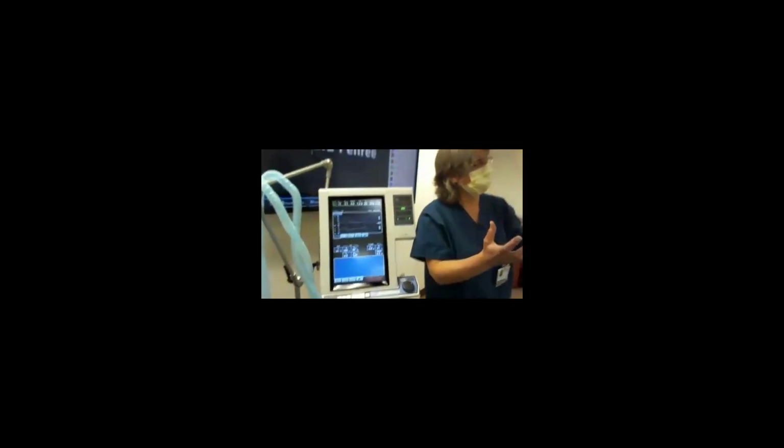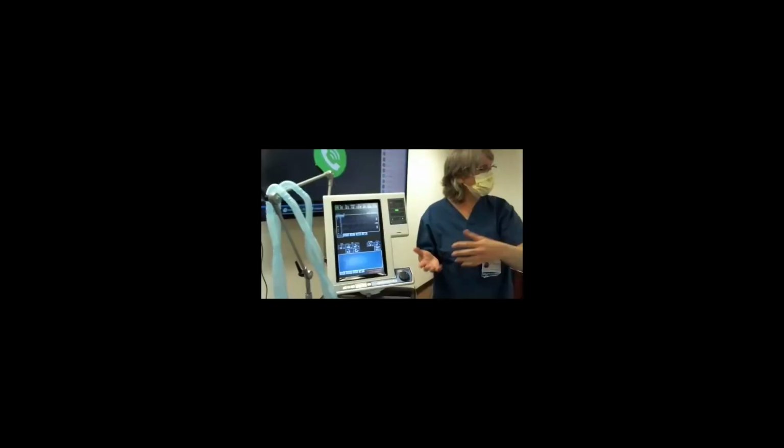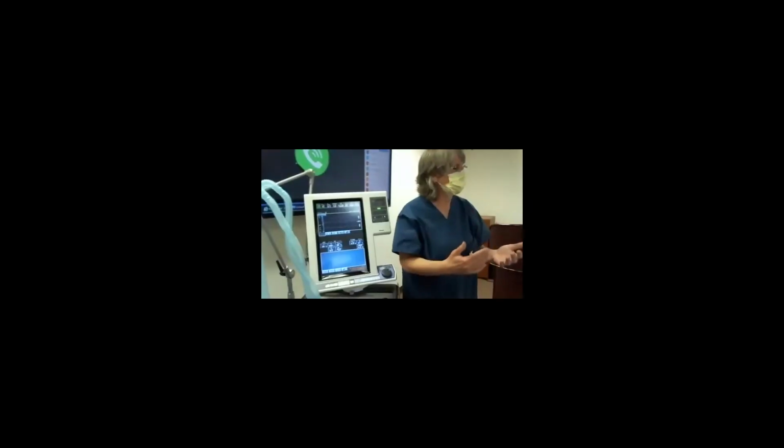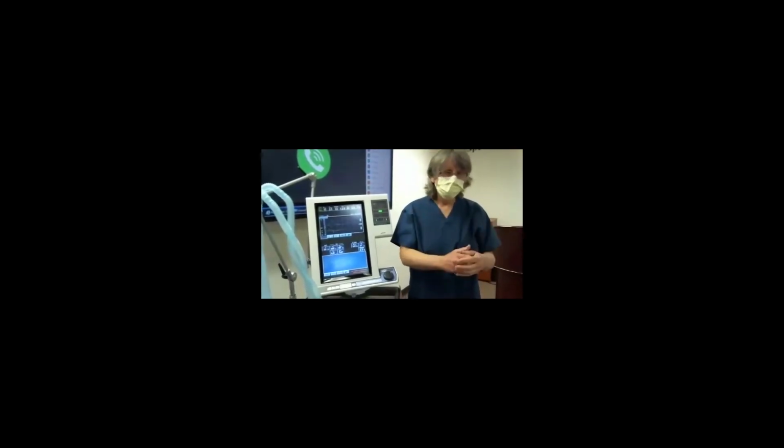Yeah. During pressure control, the pressure increases to that set pressure, and they exhale quickly to the baseline level. The bigger the difference between the peak inspiratory pressure and the baseline, the more volume they're going to get. The volume will change depending on how stiff the lungs are. If the lungs are stiff, the volume will be less. Our goal is to get volumes adequate to get the CO2s down and the O2s up, and that's your pressure control mode. If that fails, then they would consider ECMO.